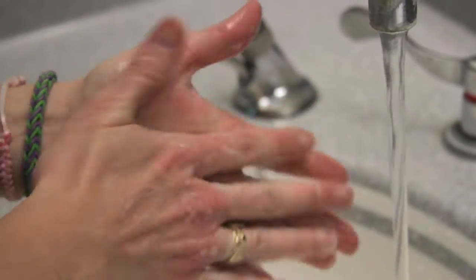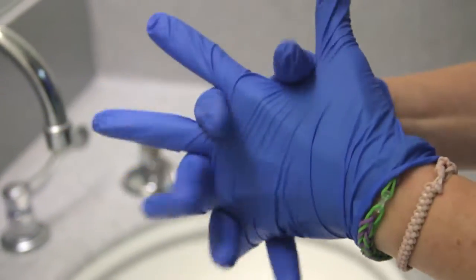Welcome to Reconstitution Review, where we'll go over how to reconstitute with various infusion devices. With all factor reconstitution, it's important to let the factor get to room temperature. And while you're waiting, you wash your hands. When they're dry, put on your gloves to get started.